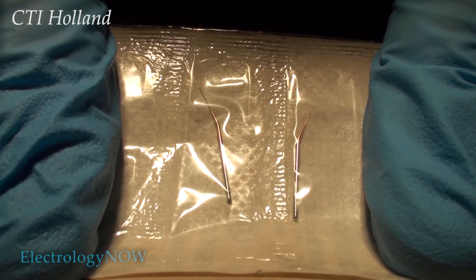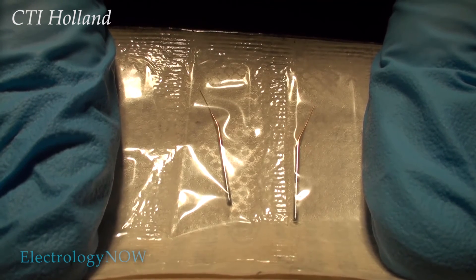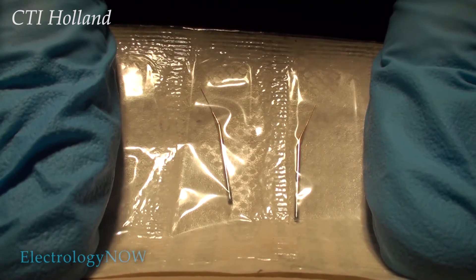C-T-I also made needles that were pre-bent. These were good needles, but they're no longer available.